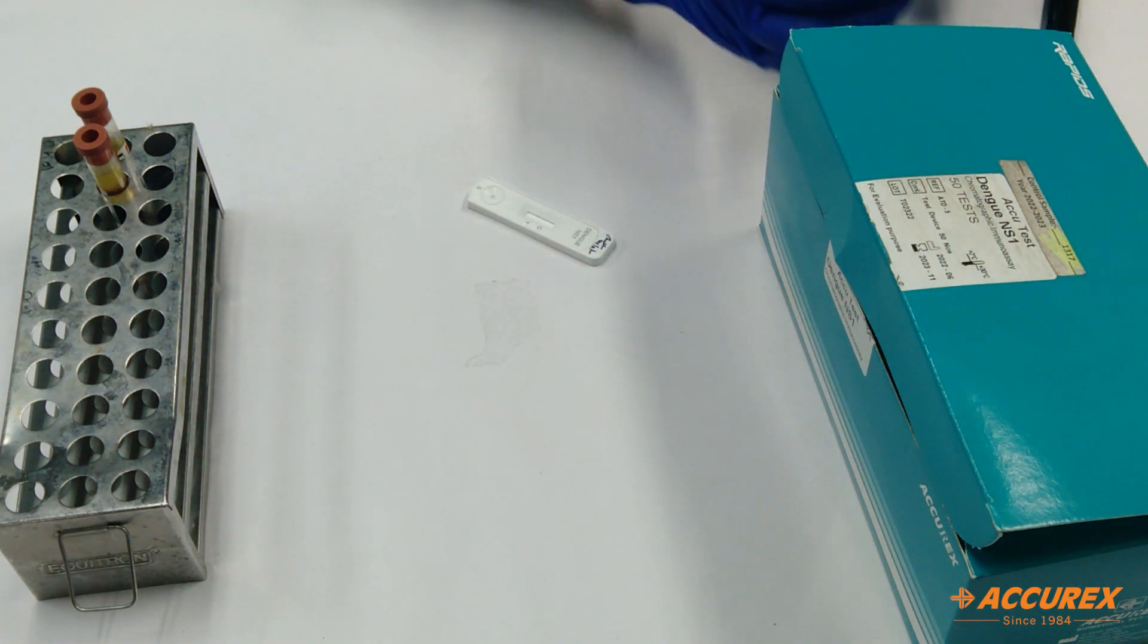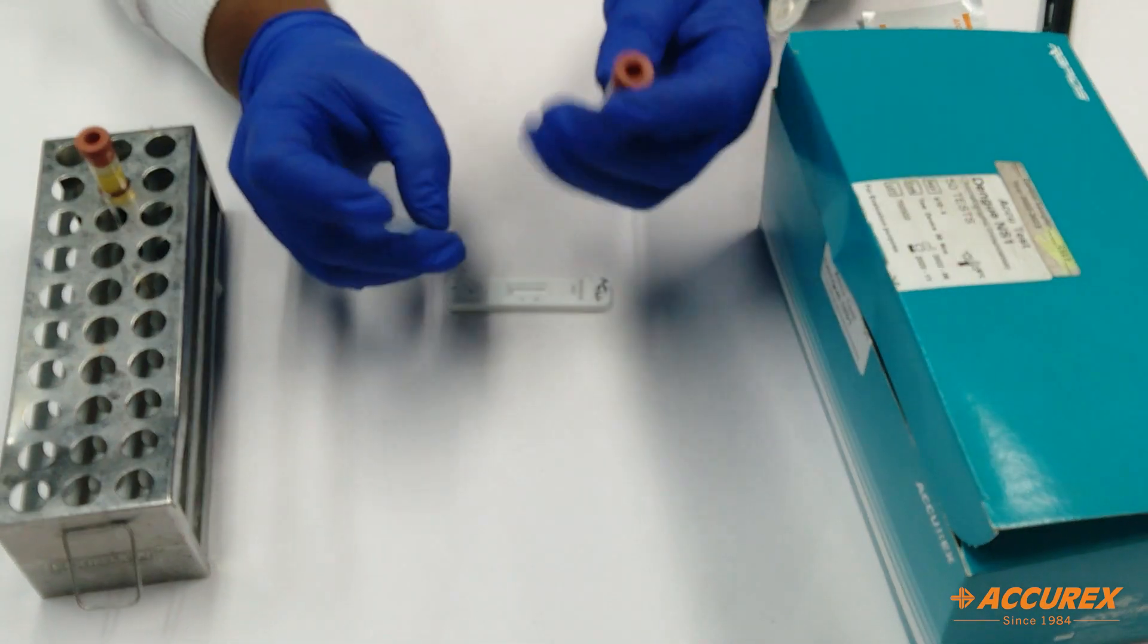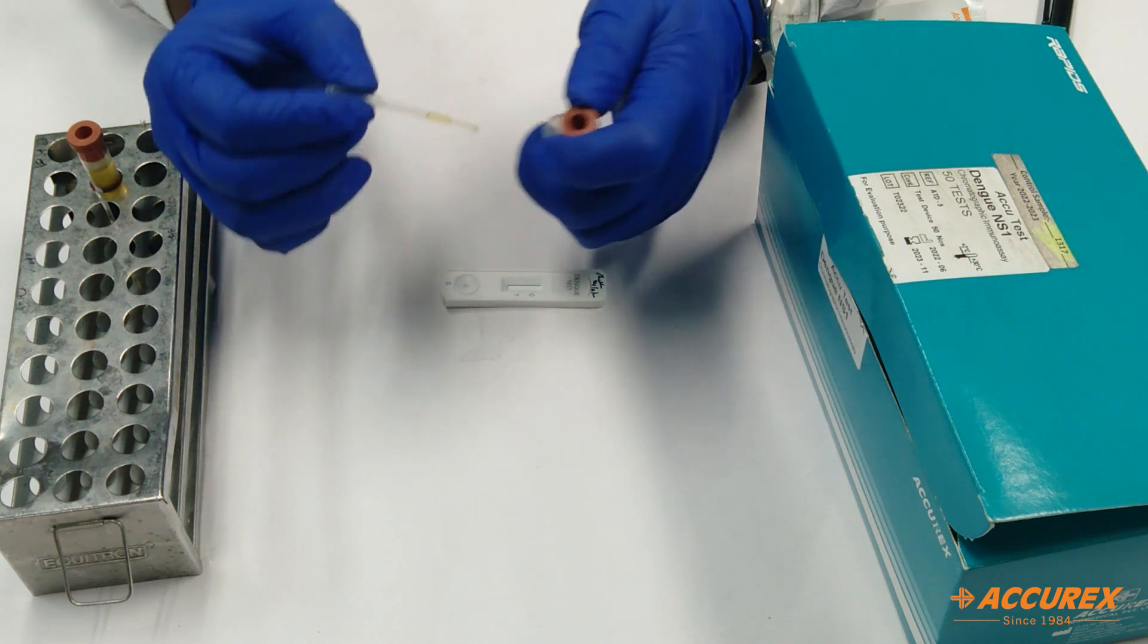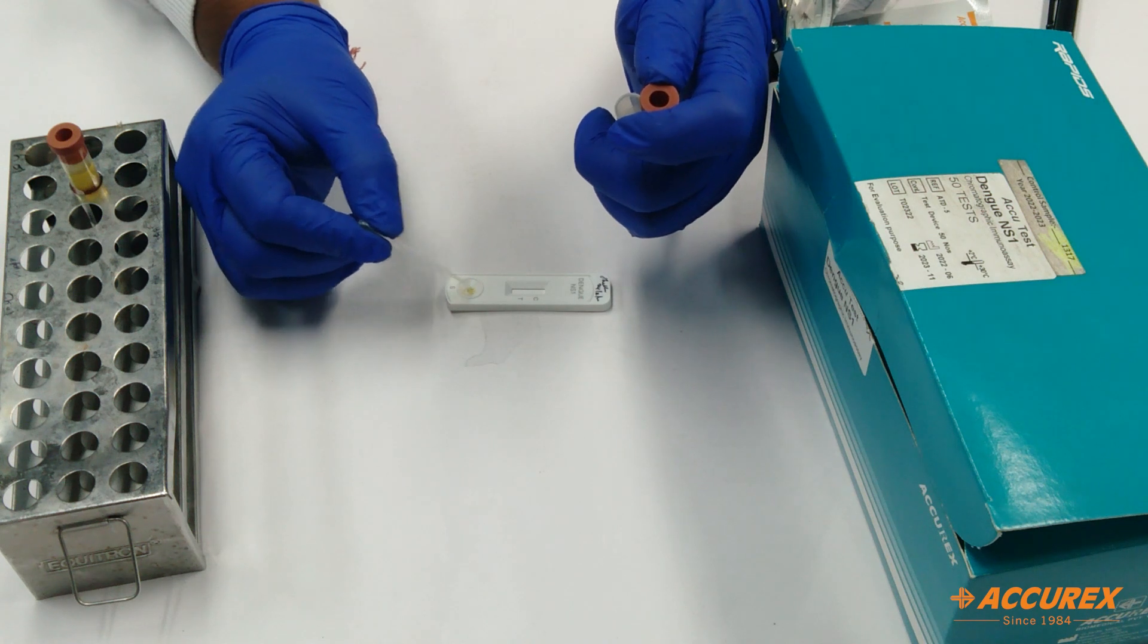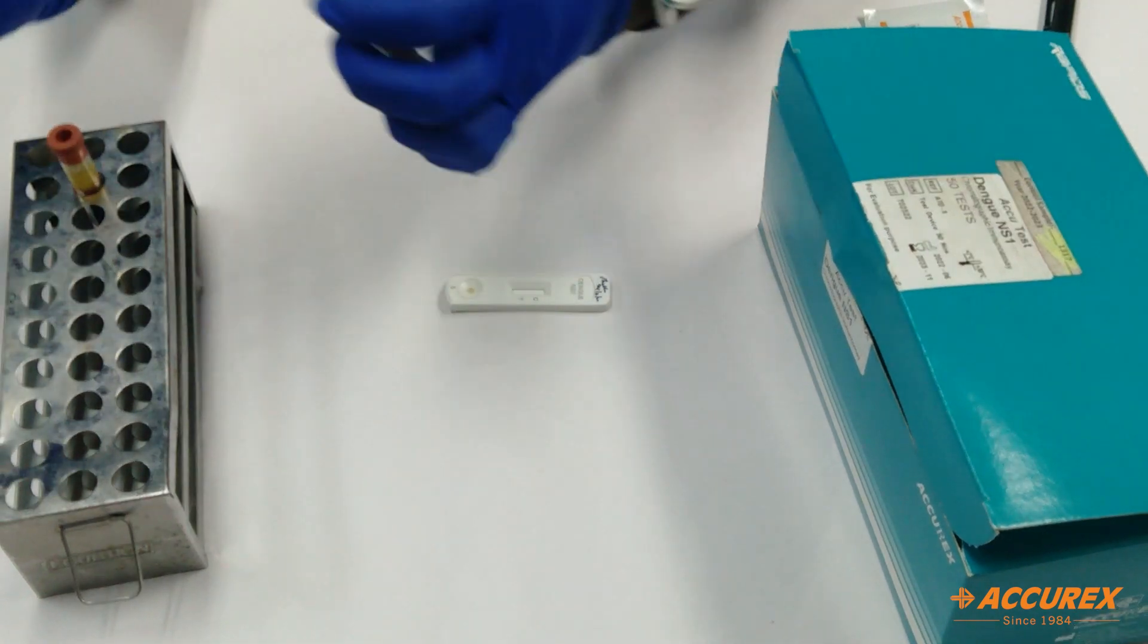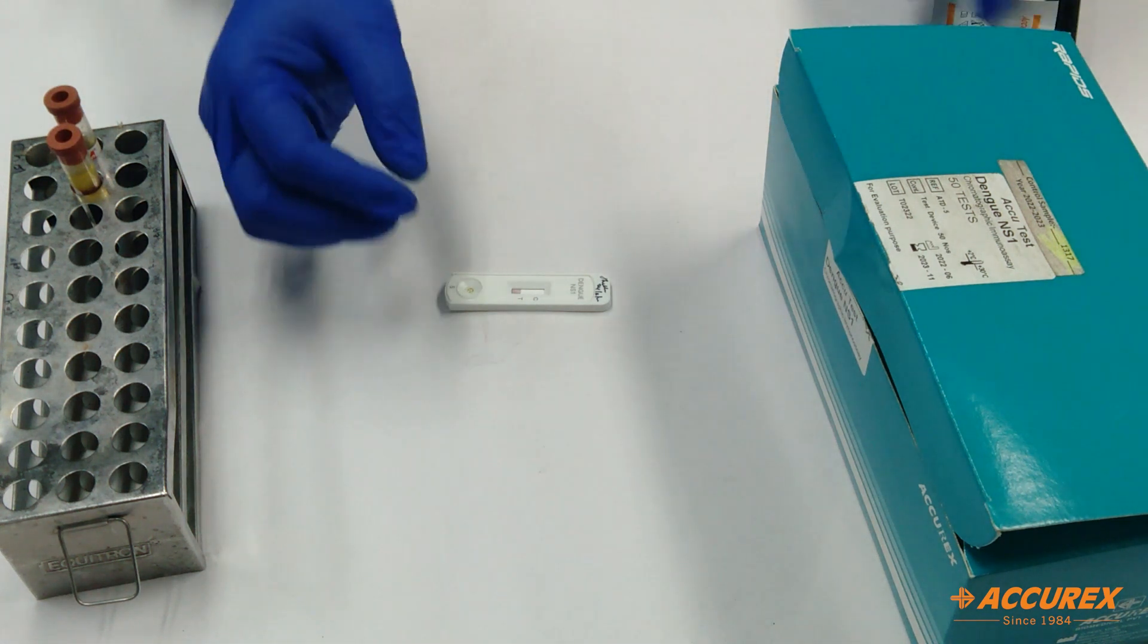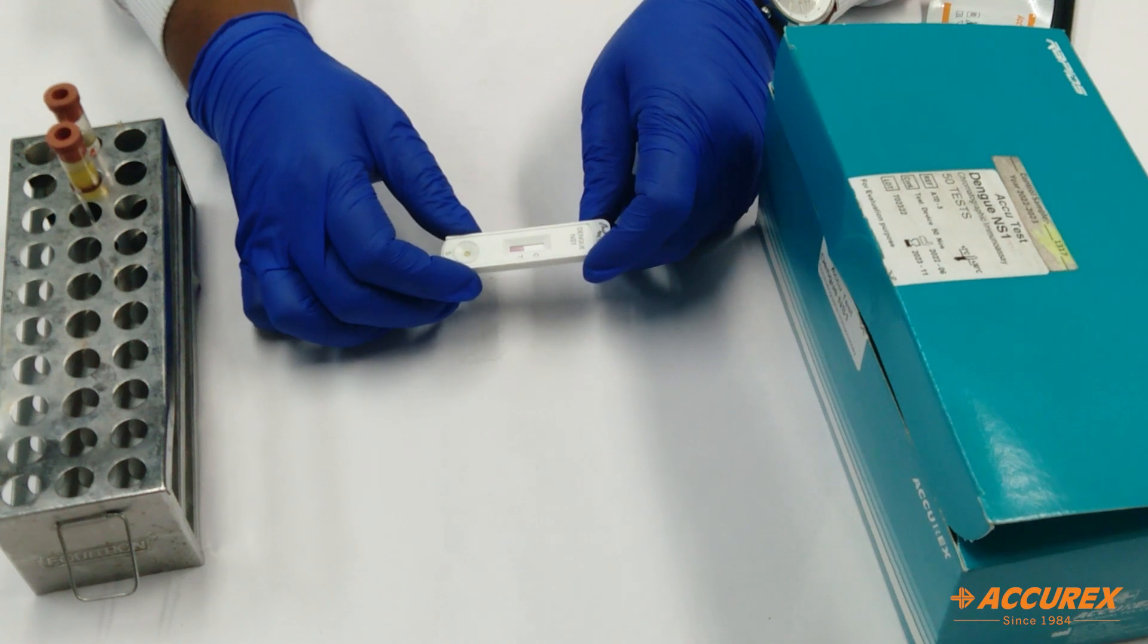For testing, we will require the serum sample. I've already taken the serum. Take two to three drops—that's enough. One, two. It will take 15 to 20 minutes, and then we will get the results.